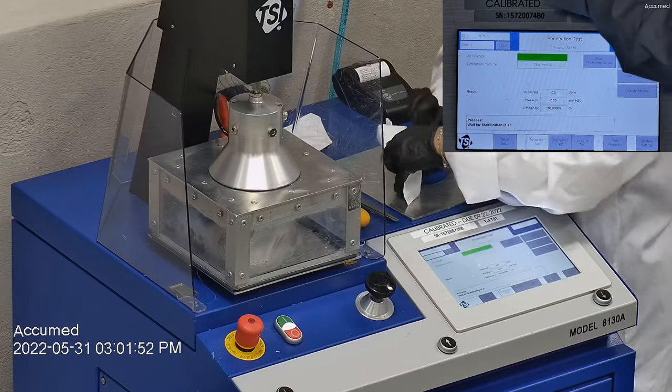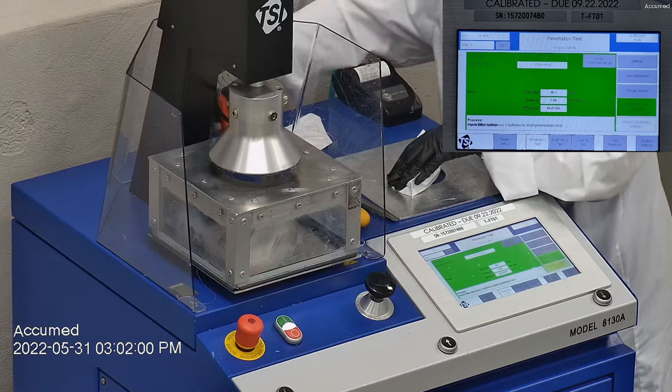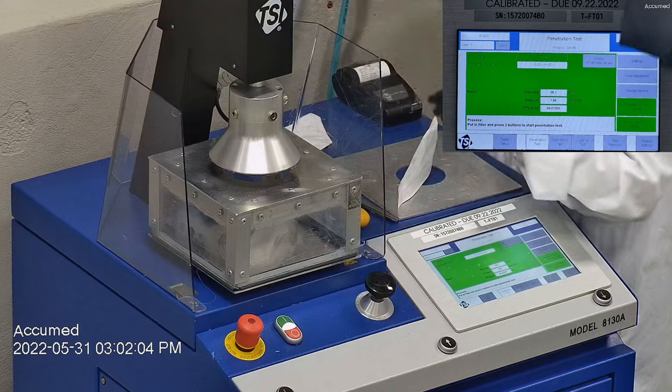The first sample tested at 99.47% with a pressure drop of 7.6 millimeters of water.